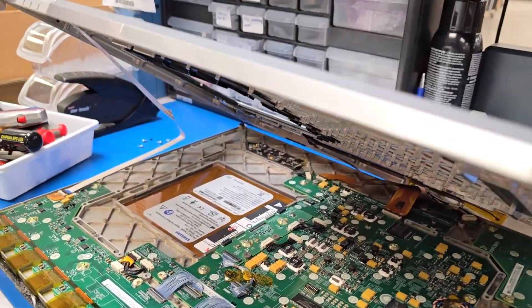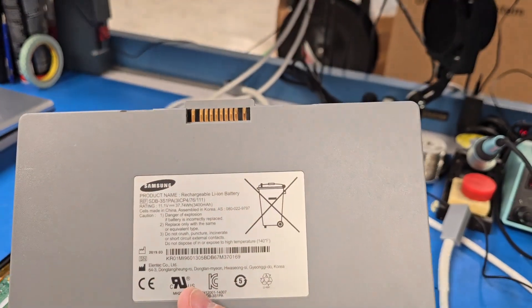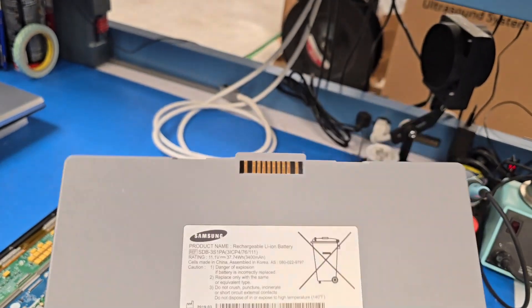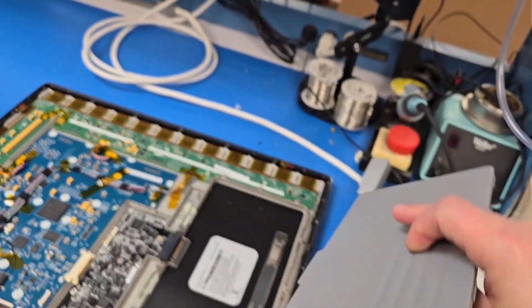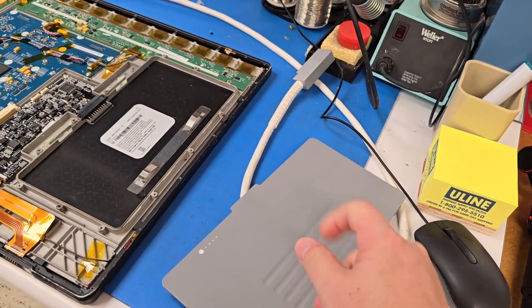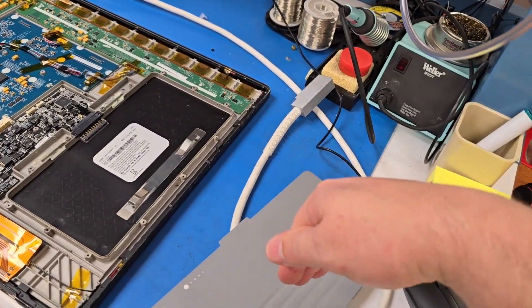This one here definitely uses a different battery. The older system uses an 11-volt, 3400 milliamp-hour battery. And as I was just informed, this battery can actually go into the Samsung portable x-ray — you can actually use it when the batteries are completely depleted. You can take the battery out of the detector and pop it in the x-ray.